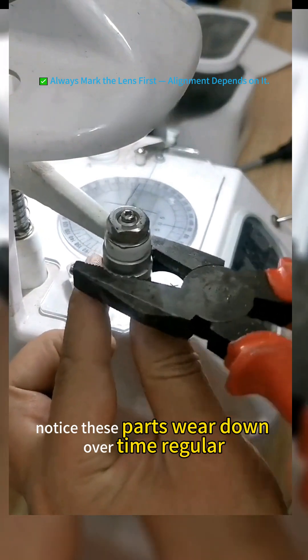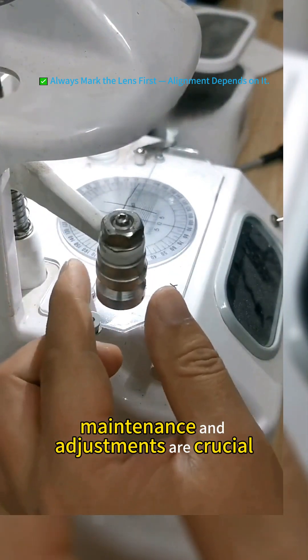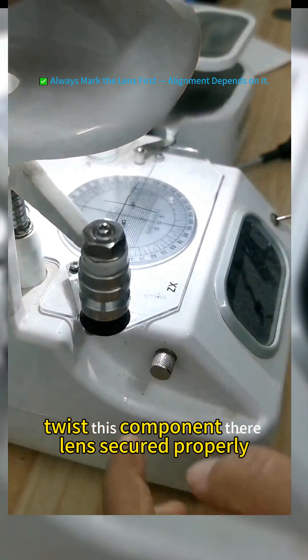Notice these parts wear down over time. Regular maintenance and adjustments are crucial. See? Twist this component. There, lens secured properly.